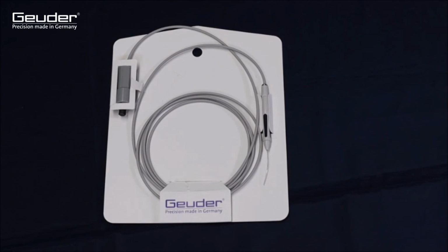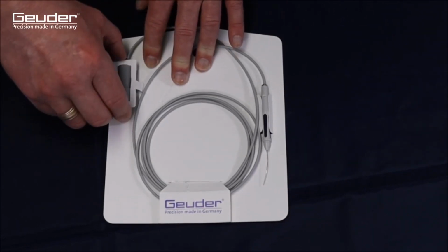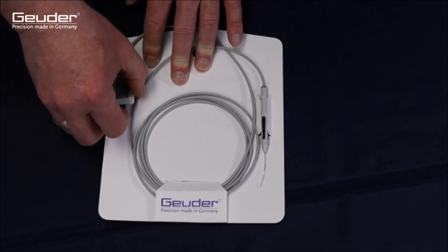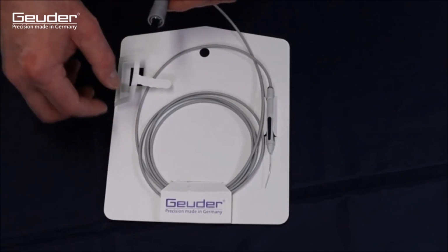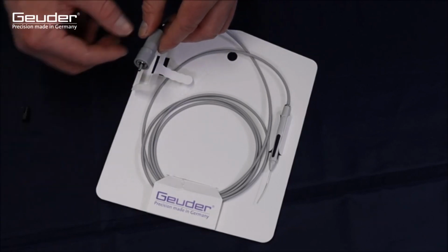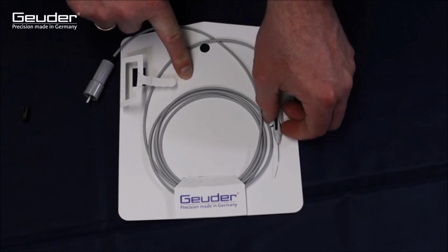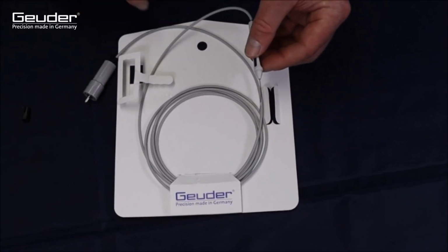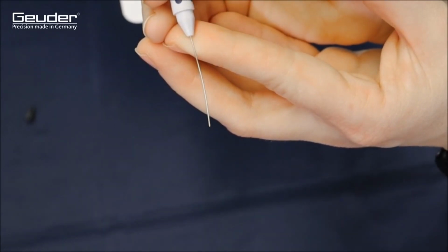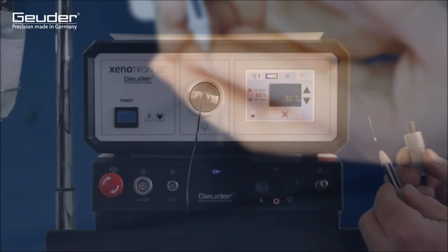Special indications for posterior segment surgery require the use of an endolaser. The laser probe, like the vitrector, should be carefully removed from the packaging so as not to endanger the sensitive instrument. It should be noted that there is still a protective cap on the plug that must be removed immediately before use. The portfolio of GEUDER also includes handles that contain both laser and light fibers in order to combine two functions in one handpiece.